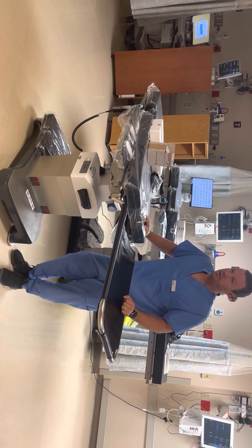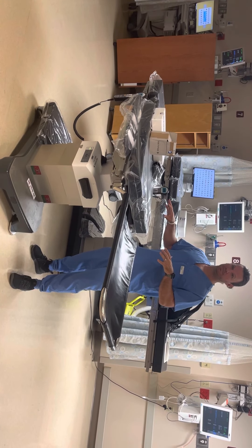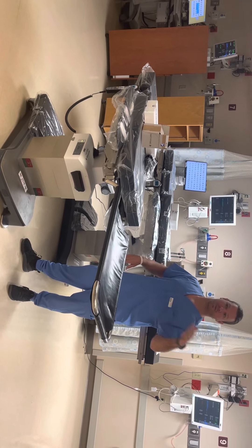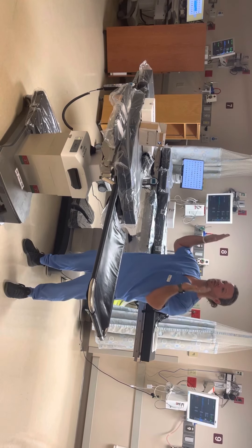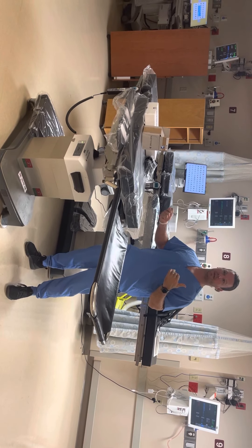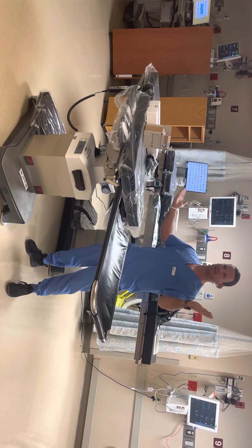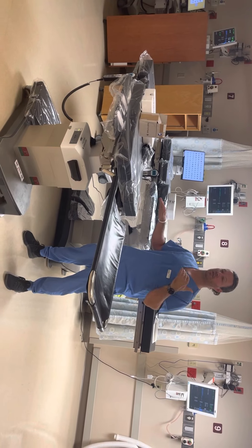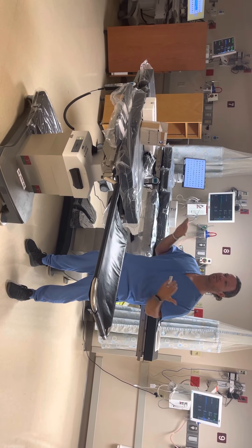I've put it in 35 degrees Trendelenburg without any issues. The point is these tables are built to be dummy-proof — if you have a C-arm in the room, it will talk to a Siemens; our tables can talk to hybrid. Basically, it tries to prevent you from putting the patient, yourself, or the table in a compromised position. When you hit the leveling function it won't snap back up — it will slowly get into position. It may take an extra button push to get into full Trend or reverse Trend, but that's to avoid putting the patient in a compromised position.